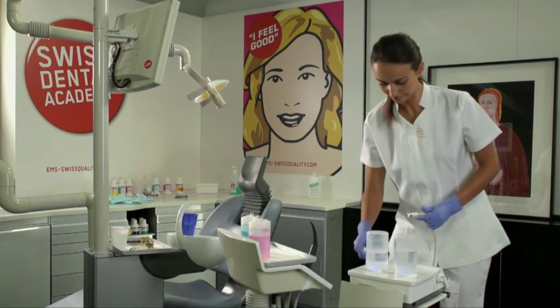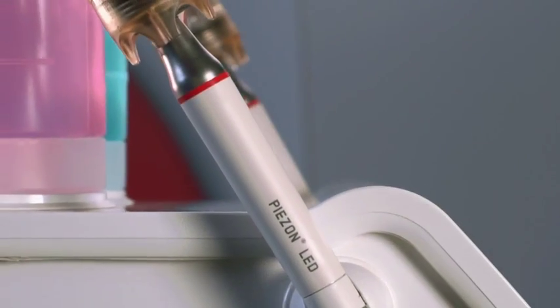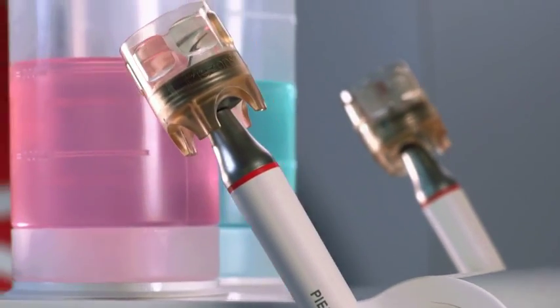Press cleaning again to reactivate your unit.